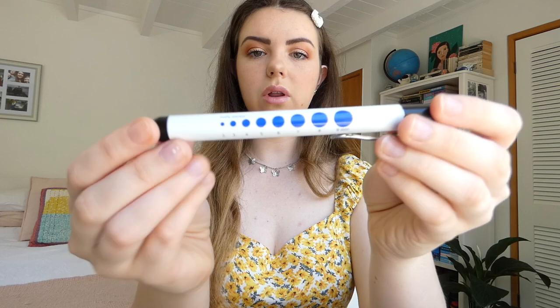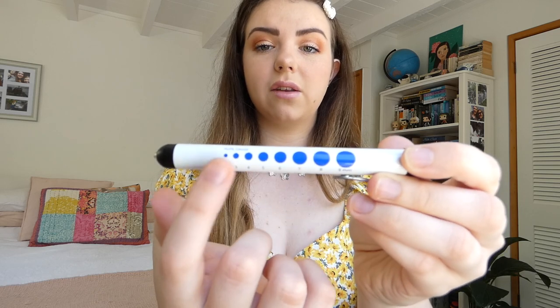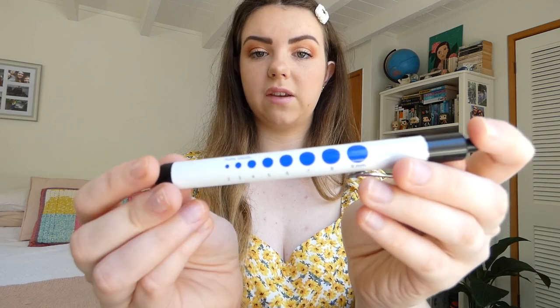This was another part of our equipment kit that we got in our lab session. It's a little eye pen — you shine these into people's eyes to test how alert they are. It's got this really helpful diagram on the side showing the different sizes of how dilated the pupils are. This is a really handy piece of equipment that I keep in the stethoscope case.